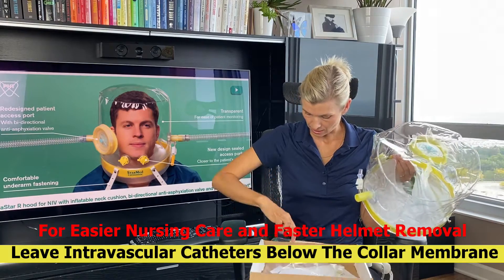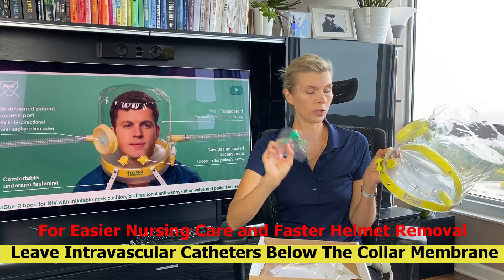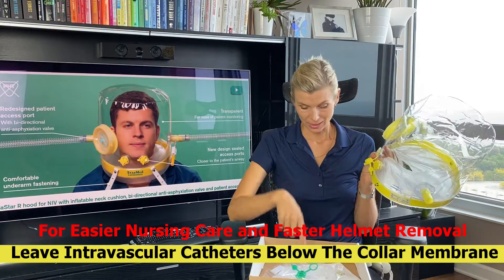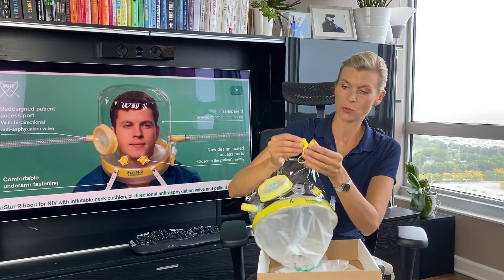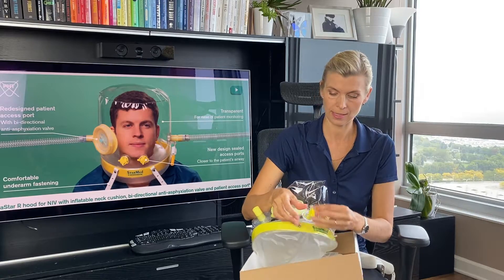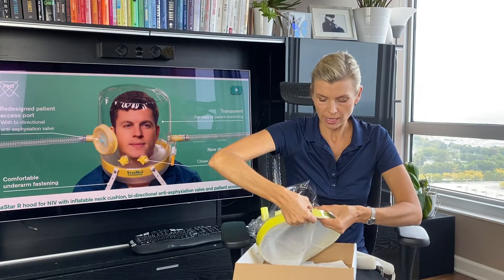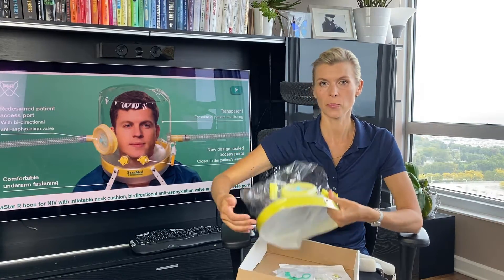There is an additional cap for the access port with a smaller diameter hole. In case you have very small tubing, this will work perfectly. What is very important when closing these access ports: you want to make sure you close the little cap first and make it tight. Only when that first cap is closed do you then close the port. The reason it should be done this way is so it doesn't pop out easily when the helmet gets pressurized.